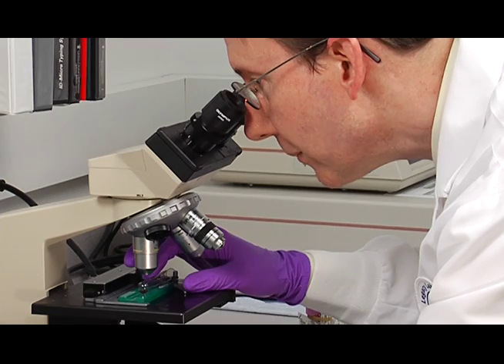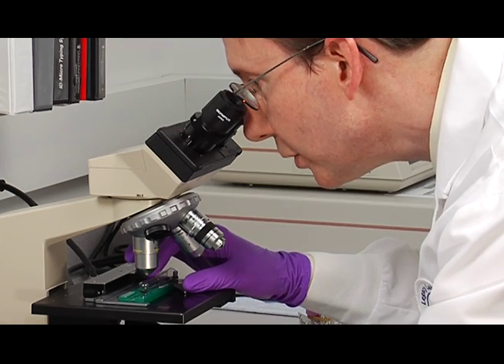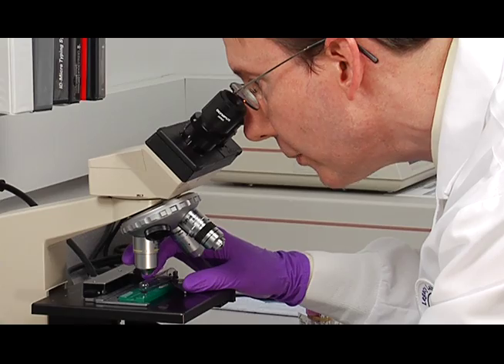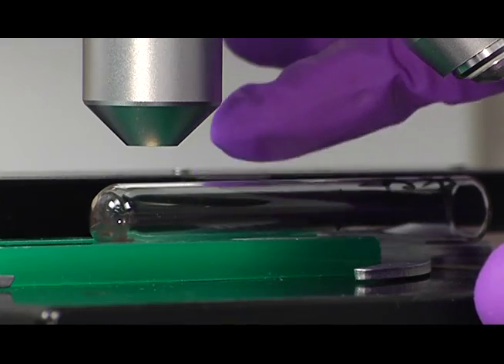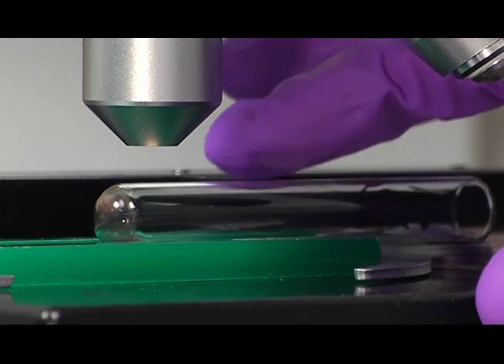And repeat the same process. We're going to roll the tube while we look through the microscope and check for any small agglutinates. And I don't see any in this sample either. So another confirmed negative.